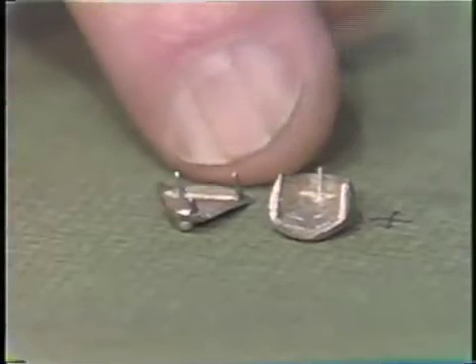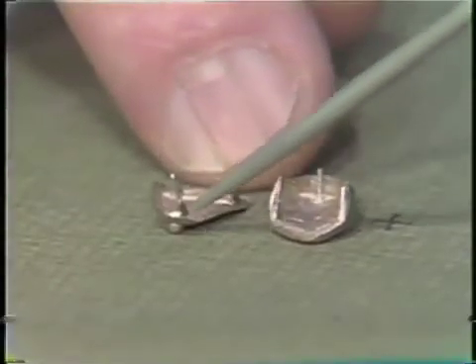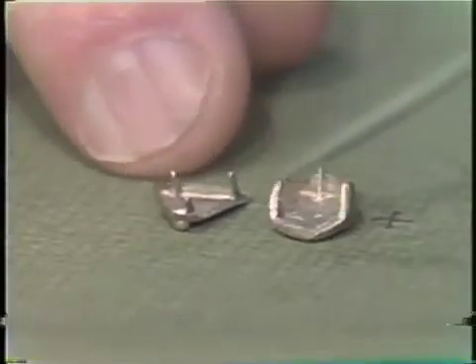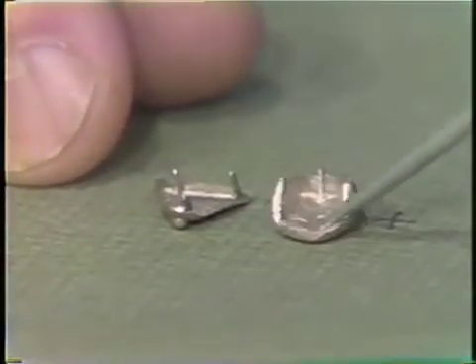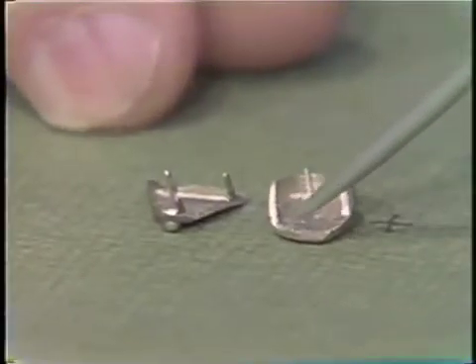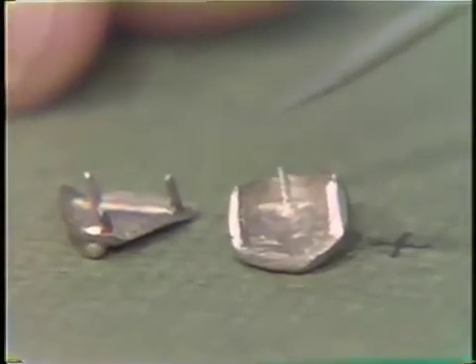After the individual castings are made, they are cleaned, scrubbed, and pickled, and then examined to make sure there are no inclusions of investment or small bubbles left on the internal surface. A small bubble or investment would keep the casting from seating all the way. Little bubbles will form at the base of the pins, and this should be carefully examined.